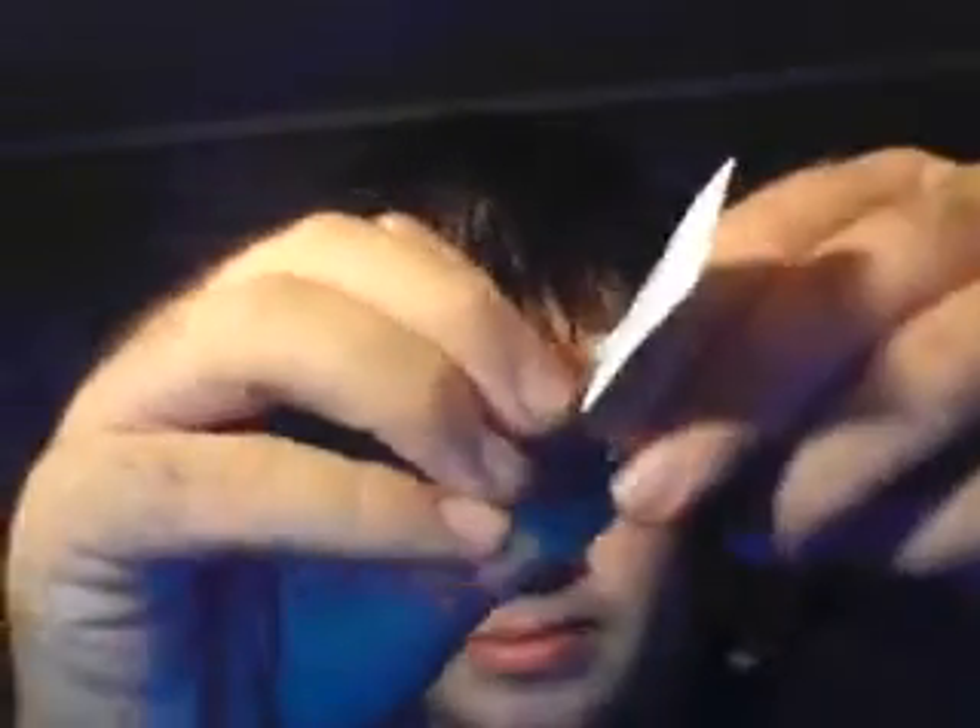So let me go ahead and open it up for you. And as you can see, it slipped back in there, so let me pull this out. So it's this tiny little metal thing — very thin. And then that is the blade. It's fairly simple. Instead of doing what you would do with a needle, you do it with this. And this is much better, because it's surgically sharpened and actually designed to do this without going too deep or anything.